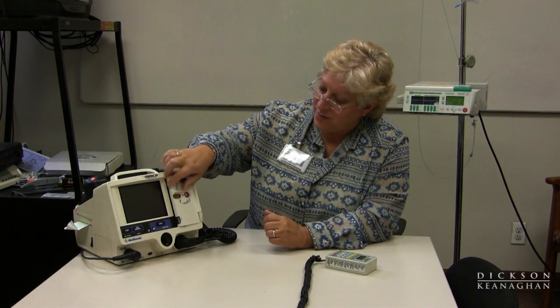When you come upon this machine, it does have paddles, but it also has an adapter for pads. It's very important that the pad adapter is kept near the machine and secure, because pads are much more efficient than paddles for monitoring, pacing, and doing defibrillation — both synchronized and unsynchronized. Pads are much better, and that'll be another lesson for us too.